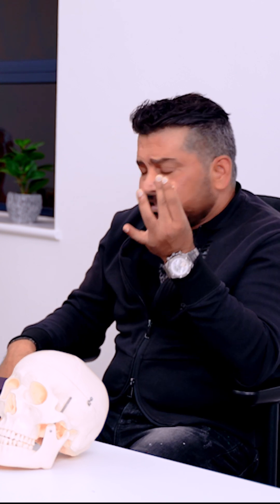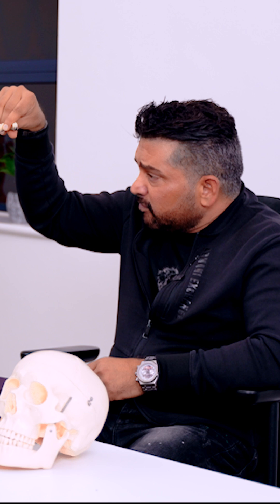The third thing is we consume liquids. Every time you drink against a surface like that, it's getting cleaned. From my own experience, as my patients have gotten older, arthritis causes them to lose their manual dexterity — but the prosthesis still needs to keep itself clean. So we engineer self-hygiene into this: we engineer the spacing between the implants and this highly polished convex surface.